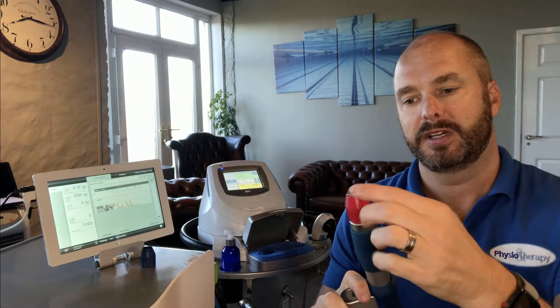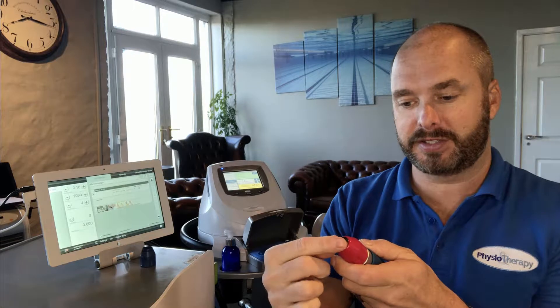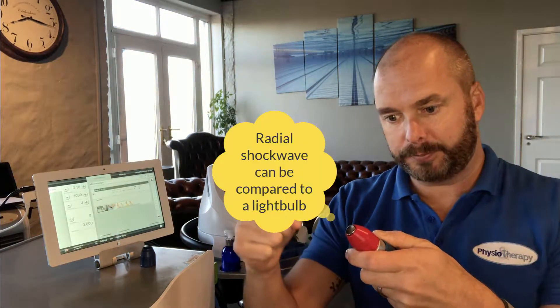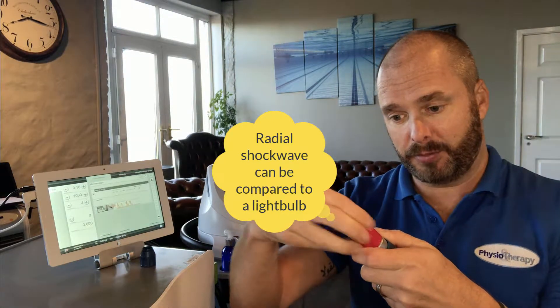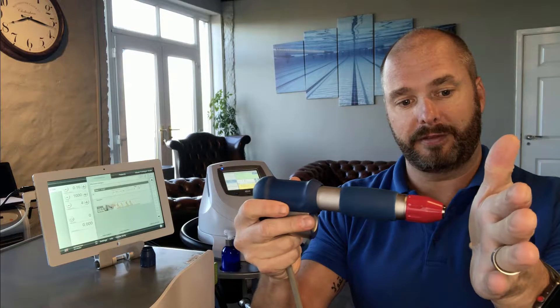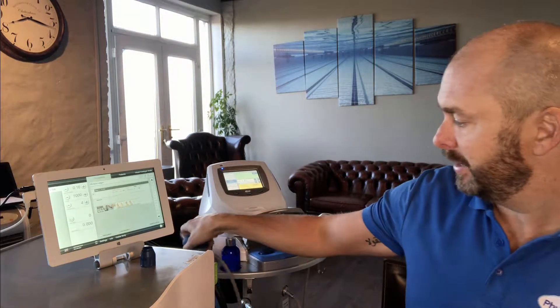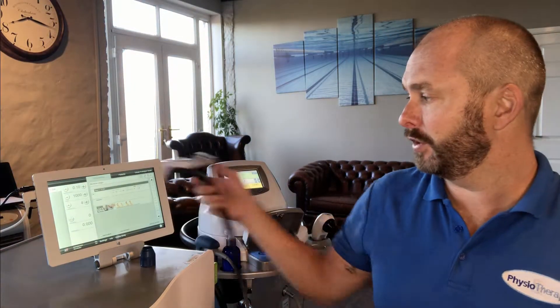When the bullet comes up and down and impacts upon this metal applicator and makes contact with the skin, the greatest pressure is at the skin surface and then the shockwaves fan out into the tissue. Like a light bulb, the greatest pressure is at the source and then it gets less and less as it fans out. So the depths of radial shockwave are superficial compared to focused shockwave.